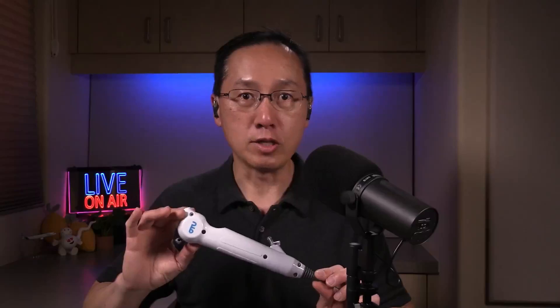To say that I've used numerous single-use disposable ureteroscopes over the years will be an understatement. For instance, I've used this one, which is a no-name — I can't even remember the name of this scope — I would not recommend it. Or I've also used this OTU scope that was being resold through BARD many years ago. I will link my review of this scope in the video description, recorded back in 2019. And my former favorite, the Dornier Access ureteroscope. I've tried them — that's just a few of them. I've tried even more, but these are what I have on hand.